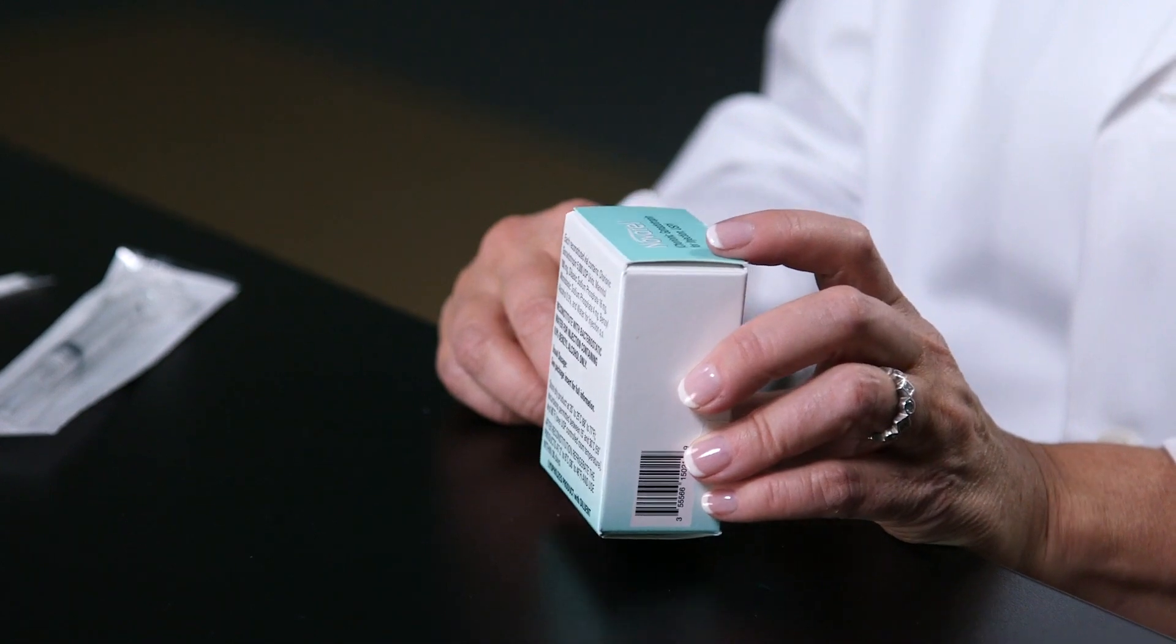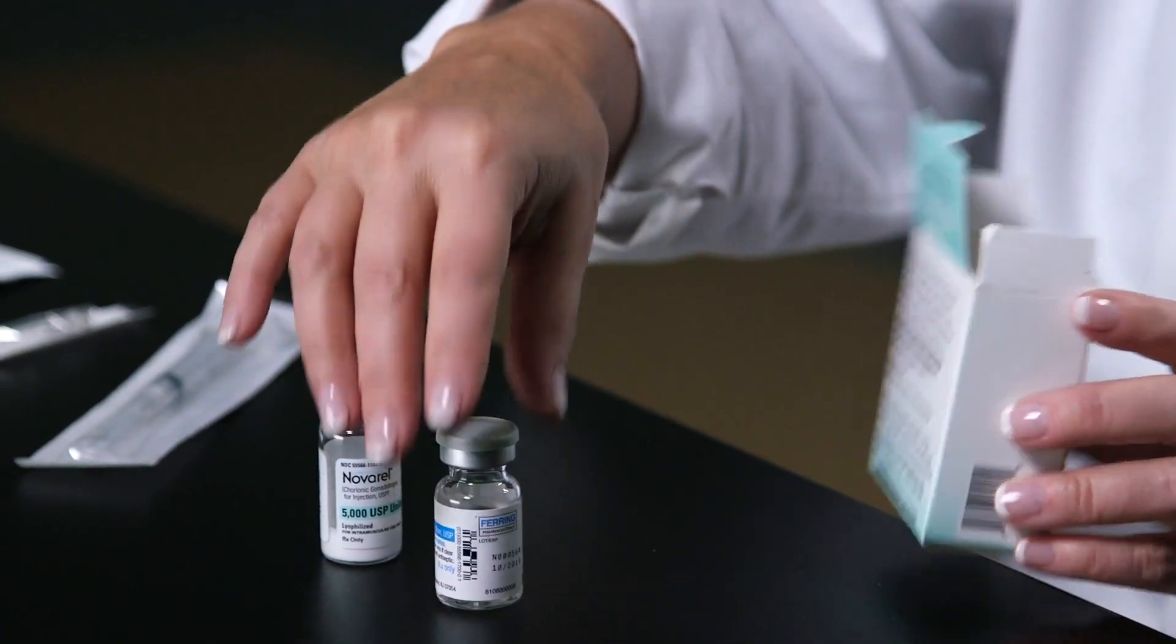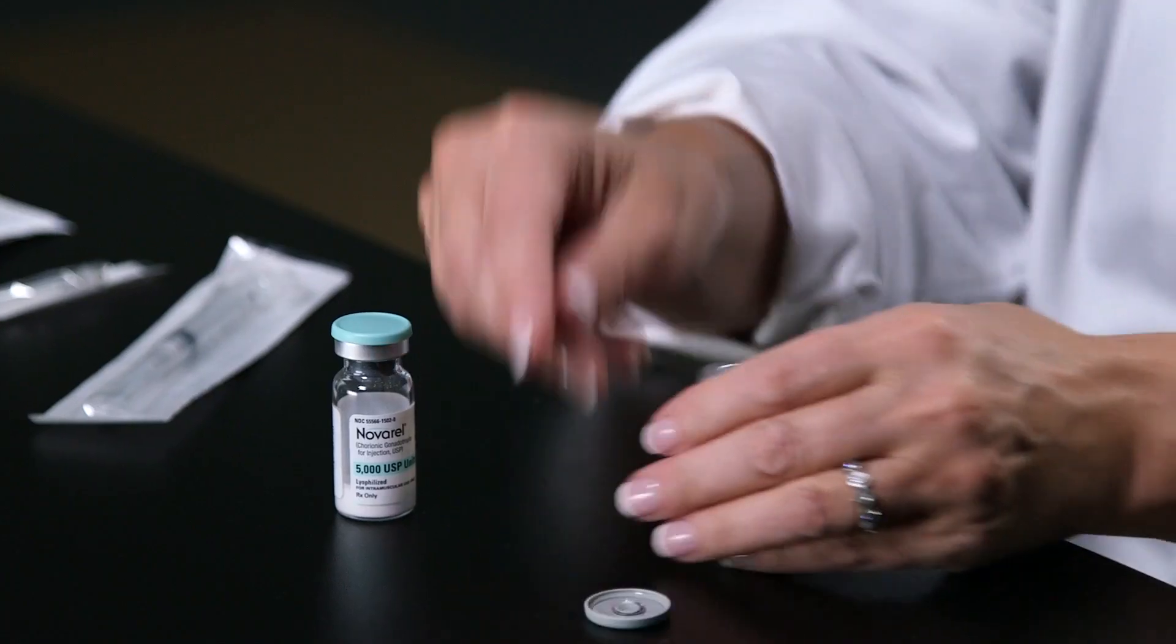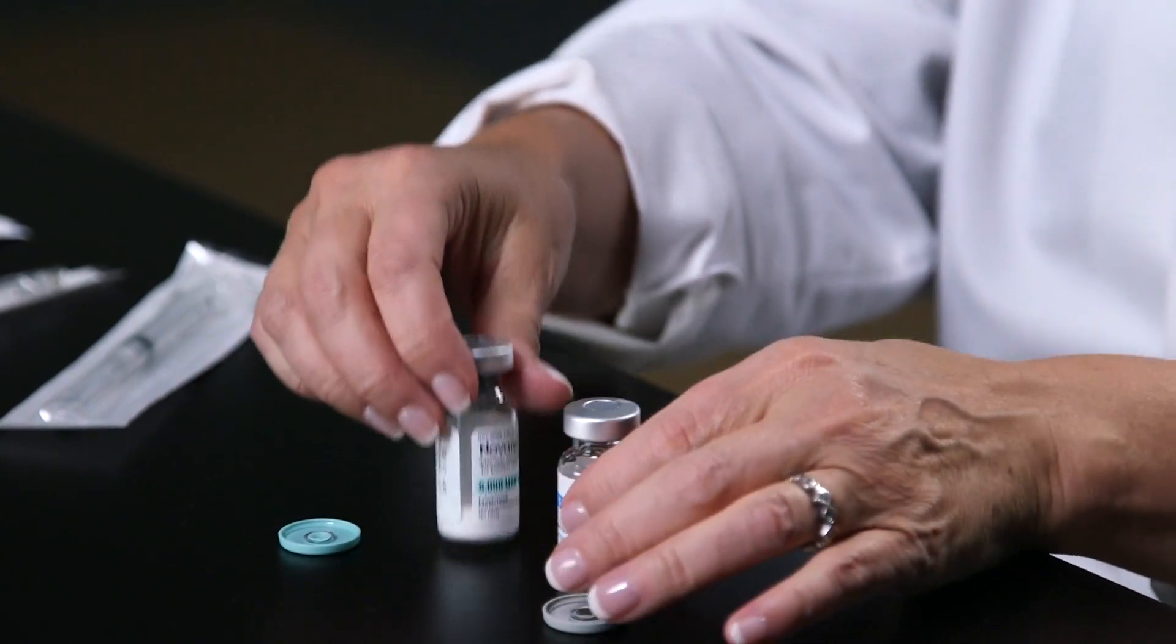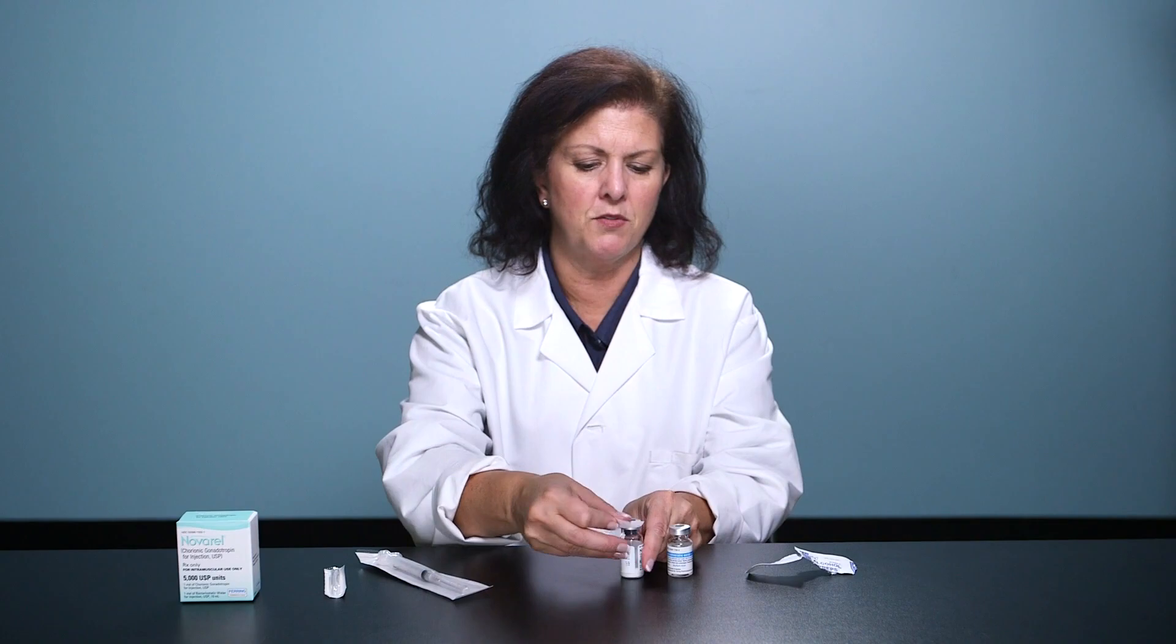Novarel is a room temperature medication. It should be injected shortly after reconstitution, but it can be stored in the refrigerator for up to 30 days. Flip off the caps of the powder and the water for injection. Alcohol wipe the tops of each vial.